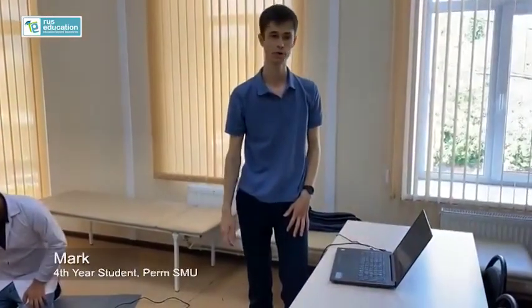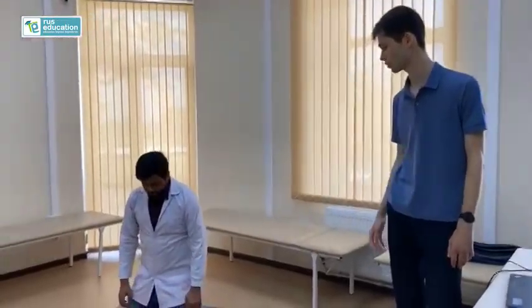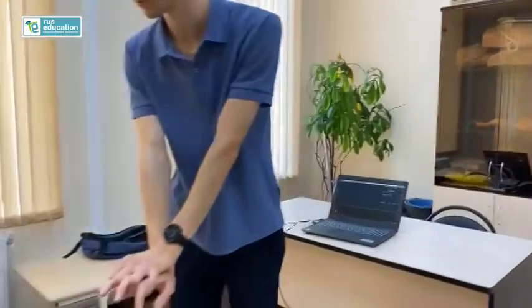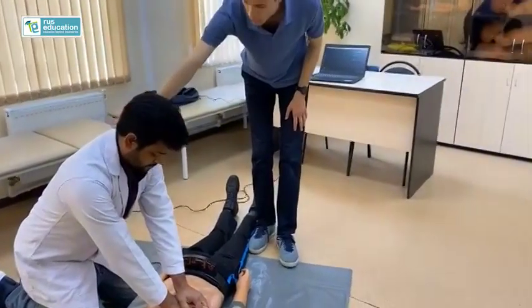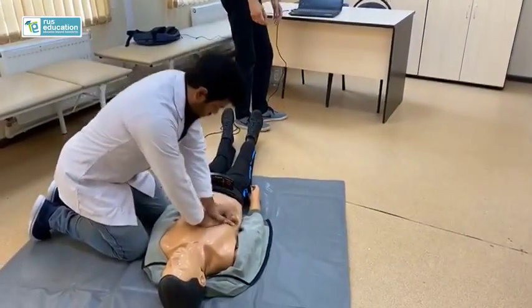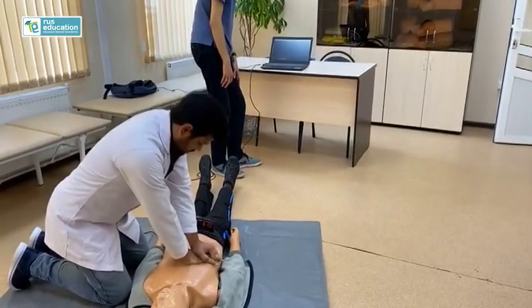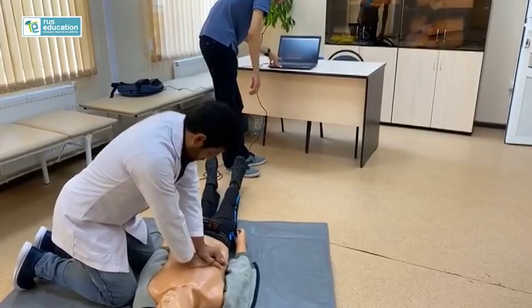This is the CPR room, where high technology helps us improve our practical skills. You can see he did very badly at first. Put your hands in the middle of the chest, straighten your arms, push with all your body — more deeply, faster, like in the song 'Stayin' Alive.' 30 compressions, then breathe. Now you can see he did better — the compressions are more effective. That's cool.